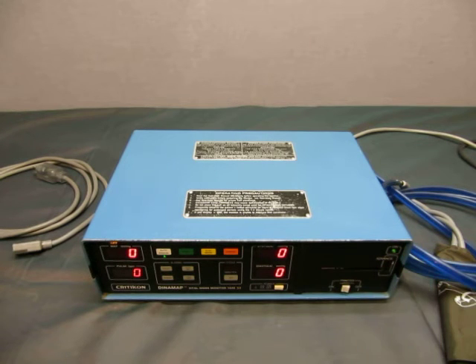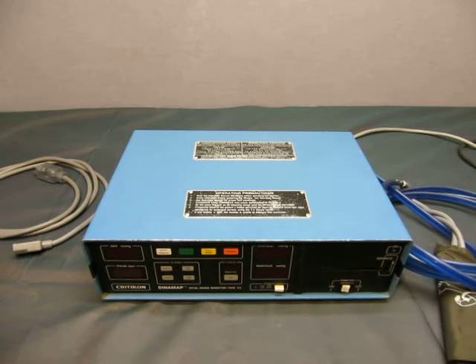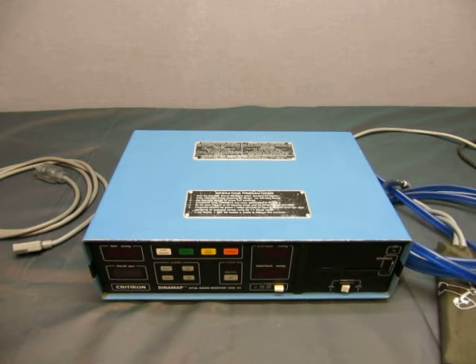The printer turns on — that's all I can tell you. Besides that, it powers up and blows some air. It takes a while for a thigh cuff though, and that's it. If you have any other questions on the unit, email me at info@currycats.com.